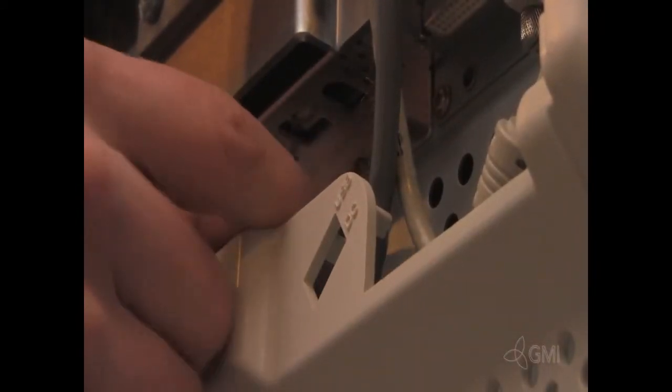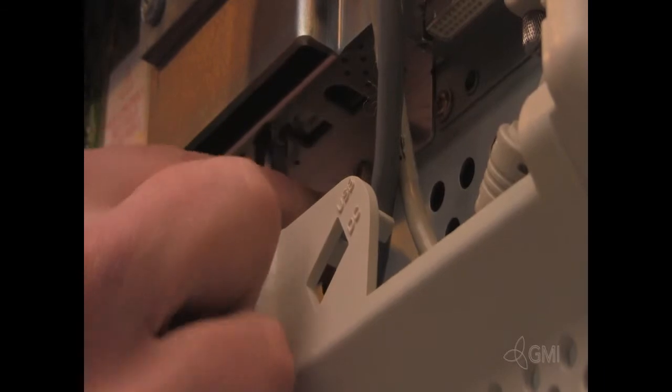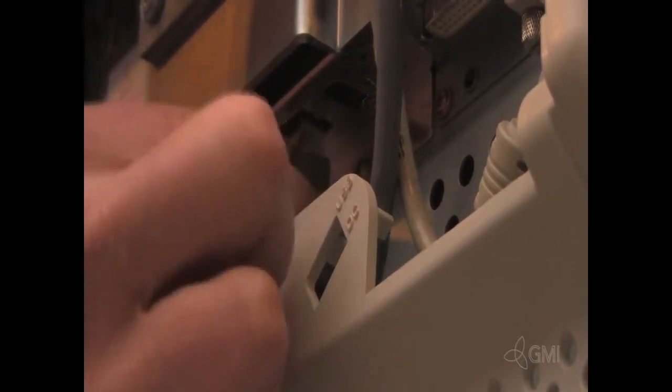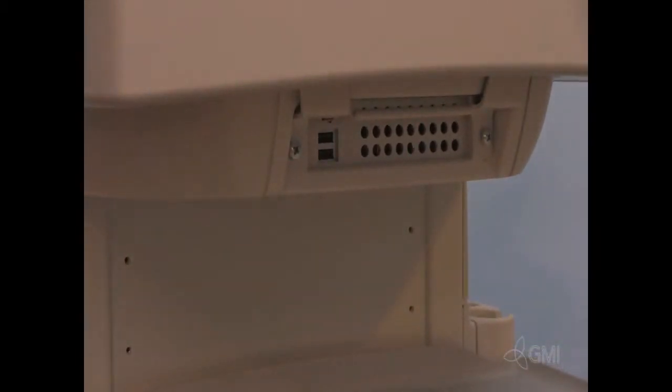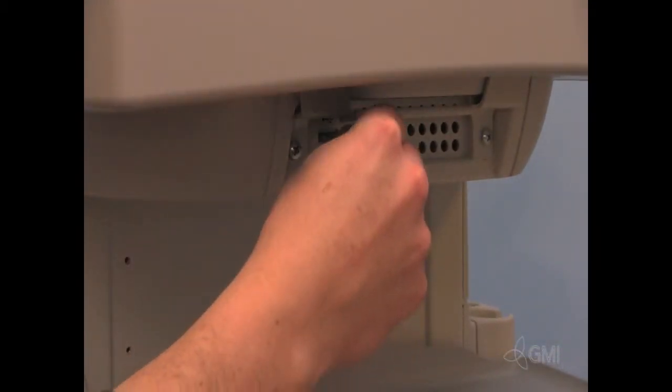Insert a standard USB cable into the bottom of the monitor. Insert the other end of the USB cable into the back of the ultrasound system.